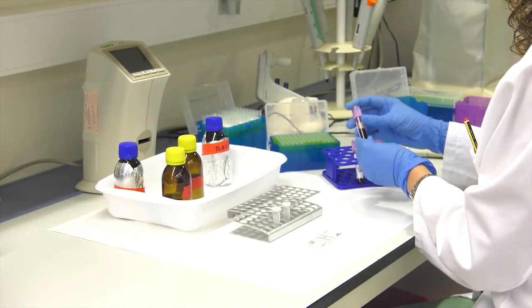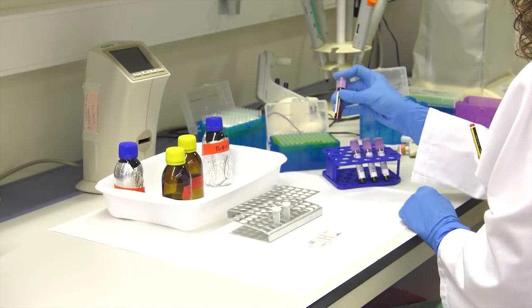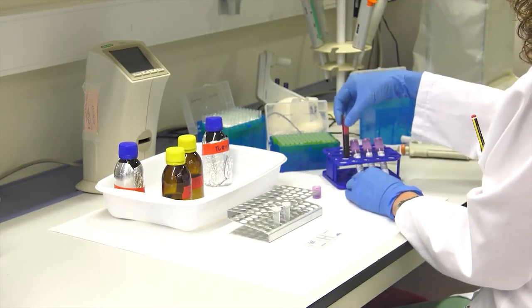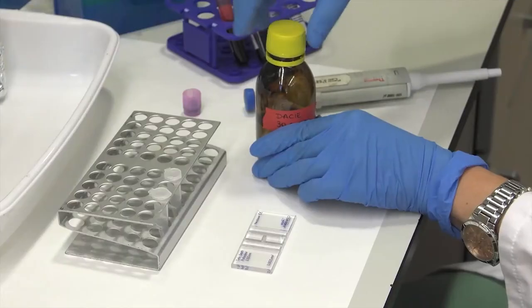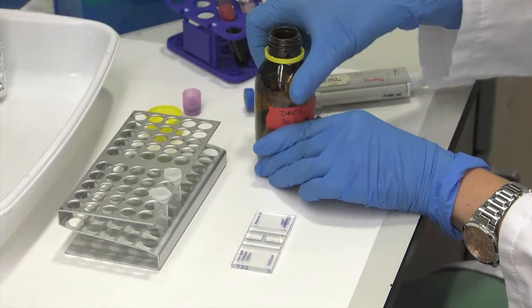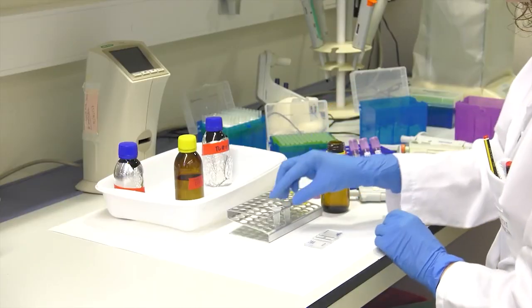Once the blood sample is received in an anticoagulant tube, the first thing to do is to gently invert the tube to homogenize the sample. It should be borne in mind that the erythrocytes are very abundant in blood, so dilution of the sample will facilitate the counting.